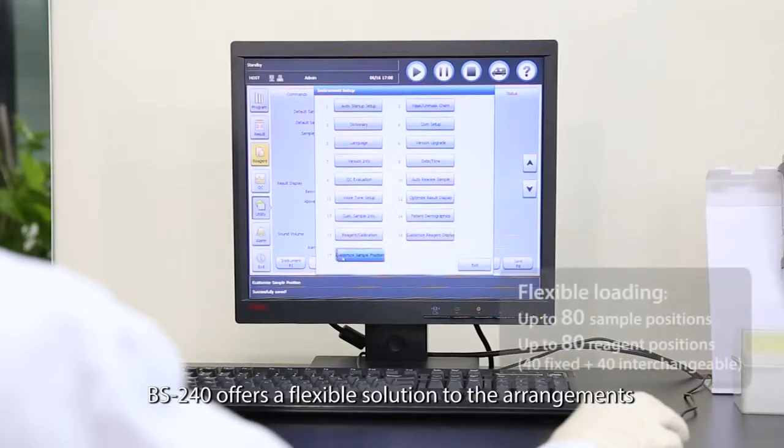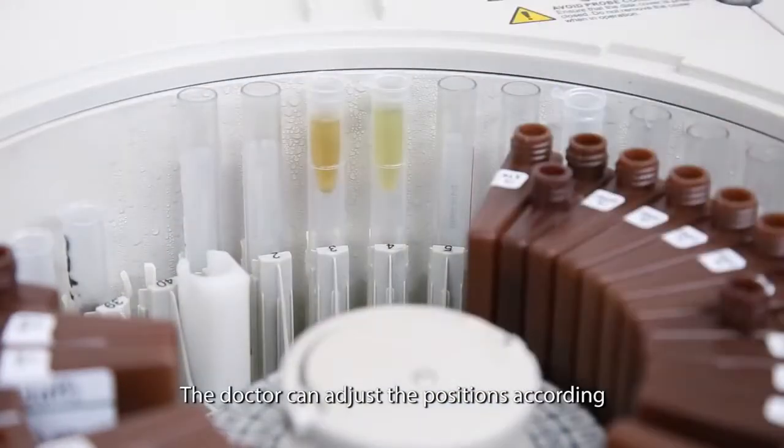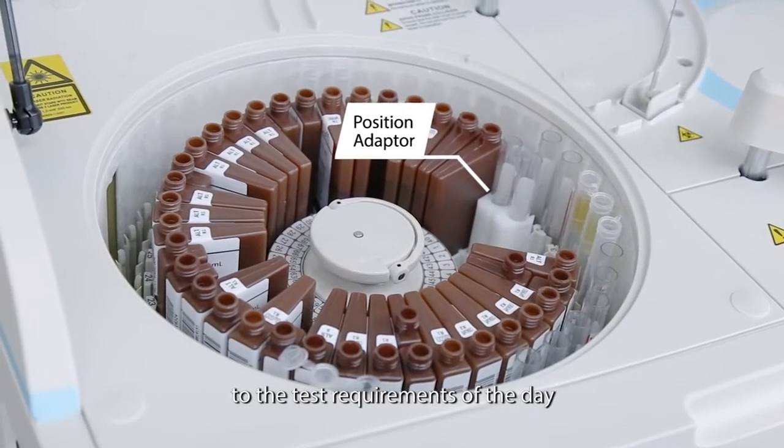BS240 offers a flexible solution to the arrangements of sample and reagent positions. The doctor can adjust the positions according to the test requirements of the day.